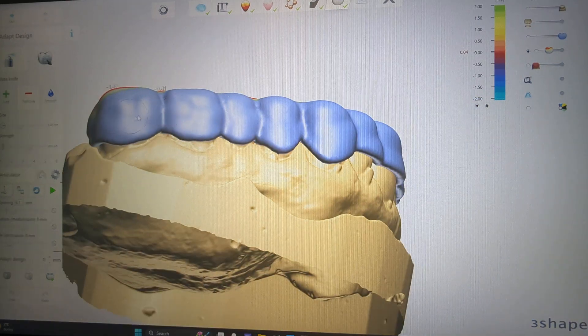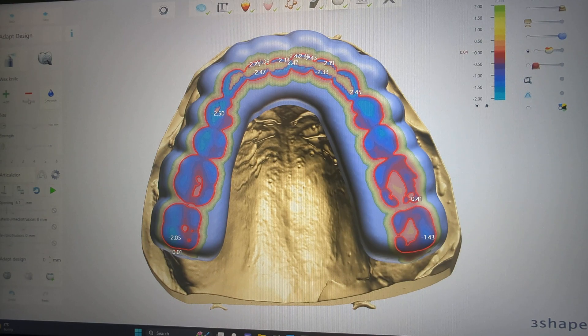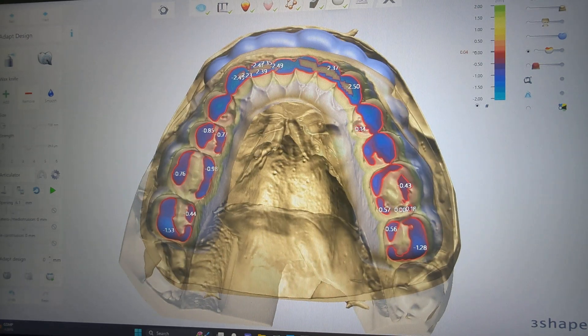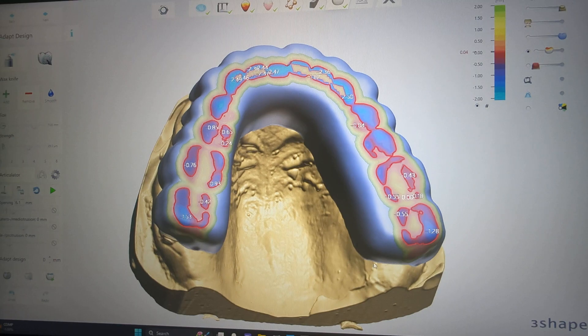We're going to smooth out all this buccal, make it all nice and flat. As you can see here, it indicates where the teeth are going to hit. I usually use my remove tool. We're going to turn on the lower model slightly so you can see how much you really need to expose. I can run the excursions at this point, however if it has too much material to push around, the creation of sharp edges will form. So if I do a little bit of removal of the base prior to running my excursions, I find they get a little bit nicer result.